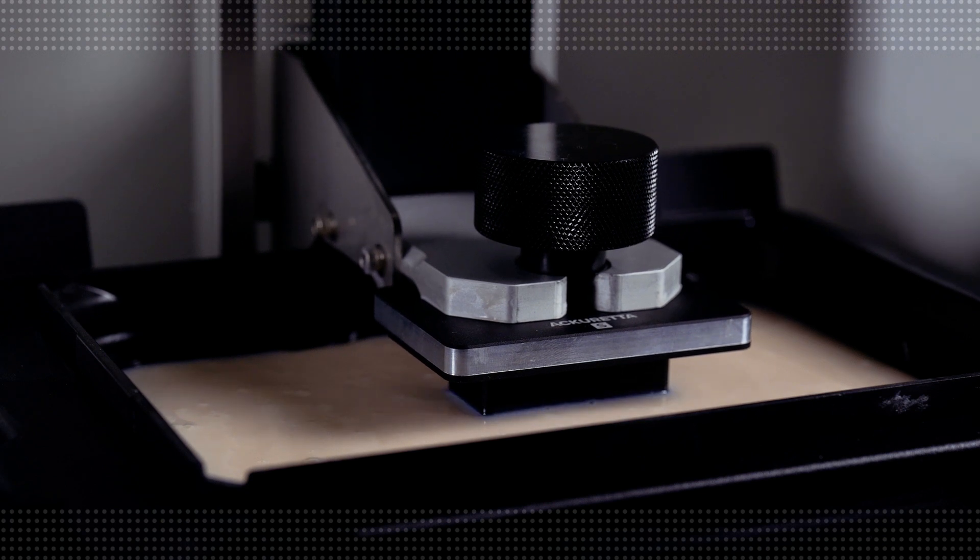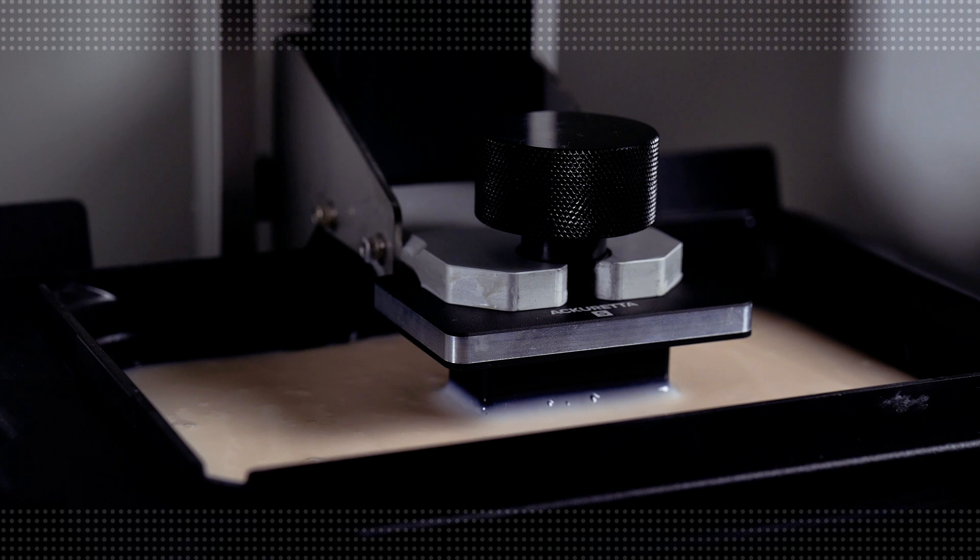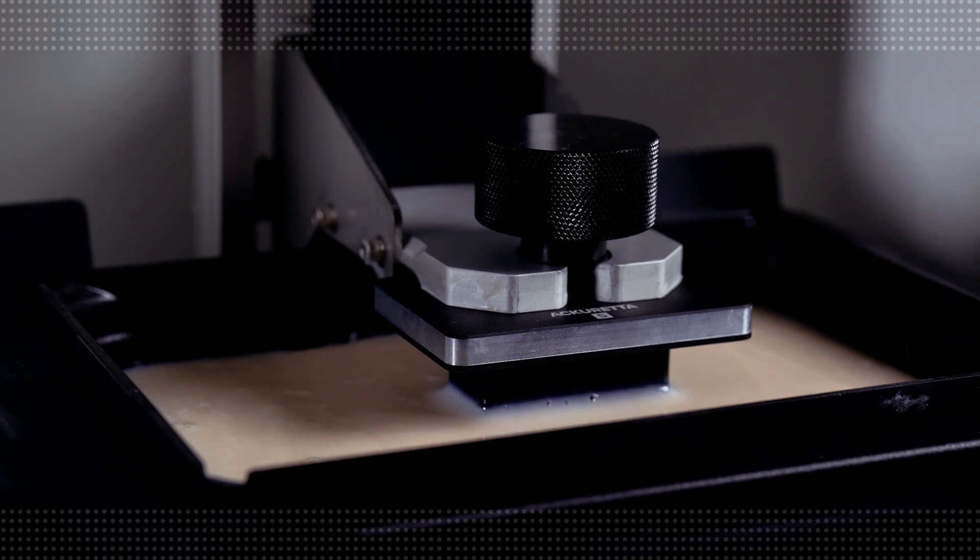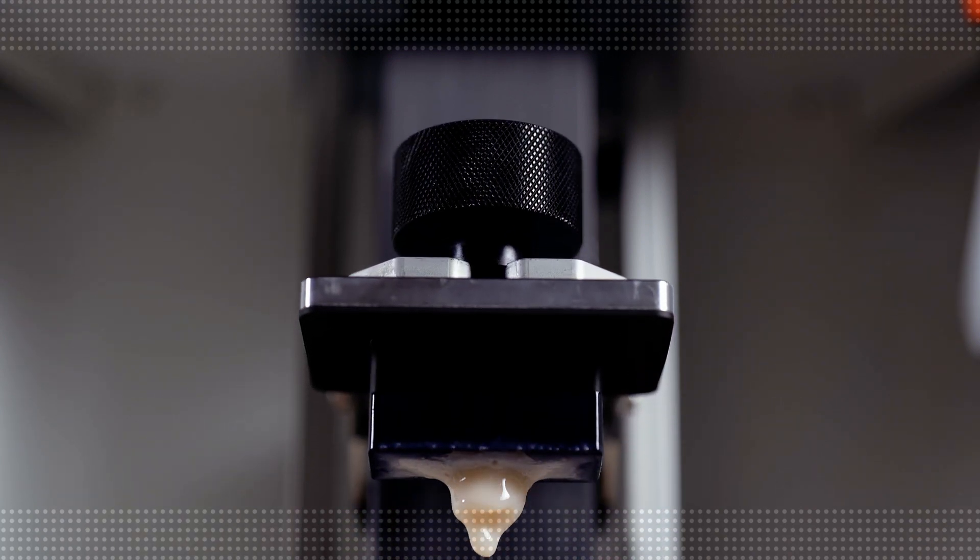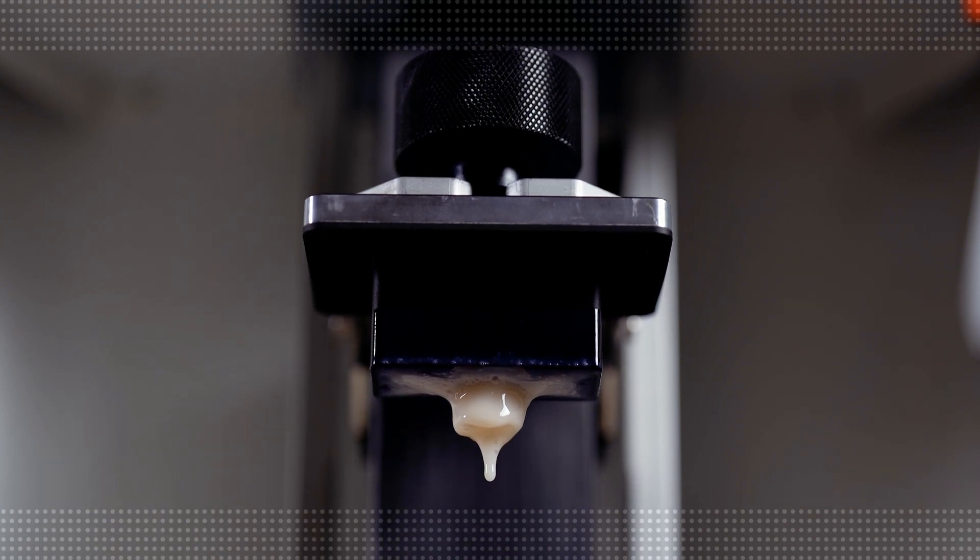I really like the XY resolution of this printer coming in at about 49 micron and really enables sharp details, as you'll see in a minute. Super crisp objects are able to be delineated, such as crown margins, thin veneers, and implant screw channels.